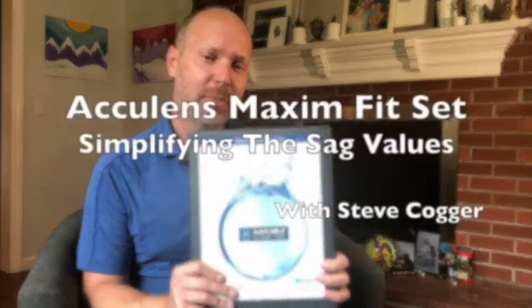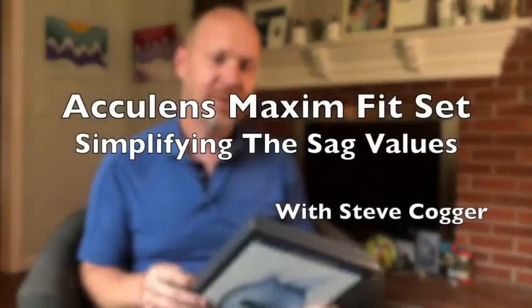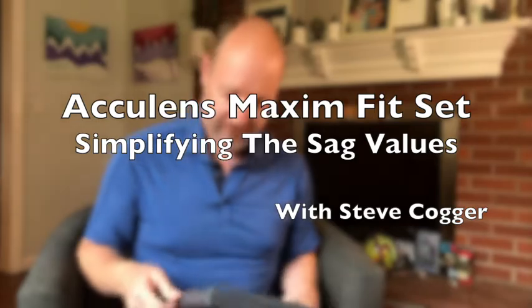Hello, all you scleral lens masters and masters in the making. I'm Steve Cogger with AccuLens, and today we are going to talk about the Maxim scleral lens fit set and how to utilize it properly so you can reduce chair time and become more successful fitting scleral lenses.